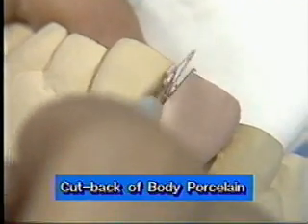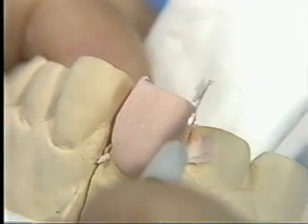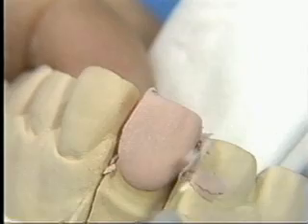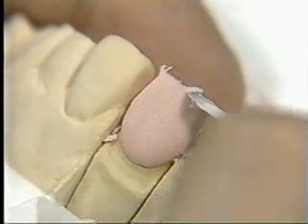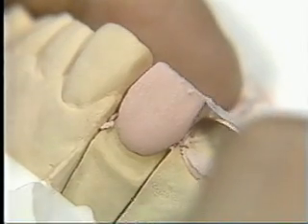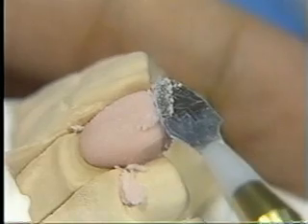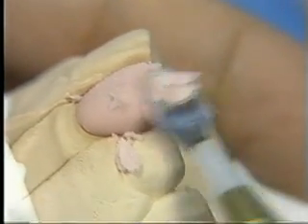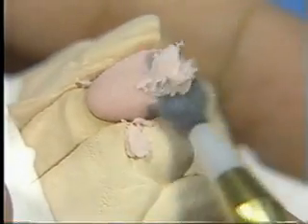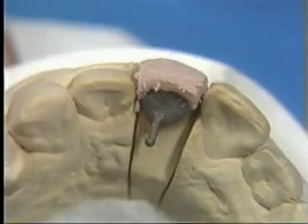Go on for the cutback from the proximal surface. Cut back about 0.5 millimeters on the incisal edge. Cut back the incisal 1/3 on the labial surface. After cutback, check for sufficient space for enamel buildup.